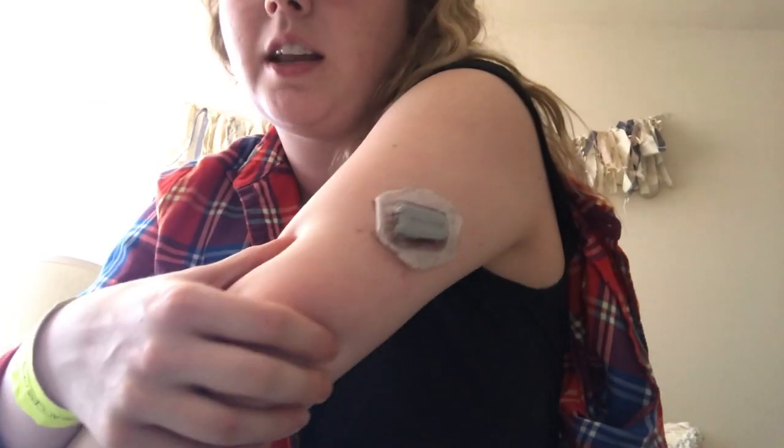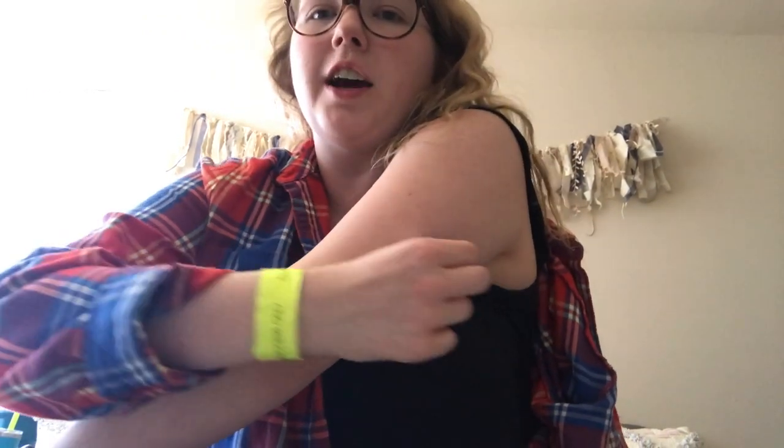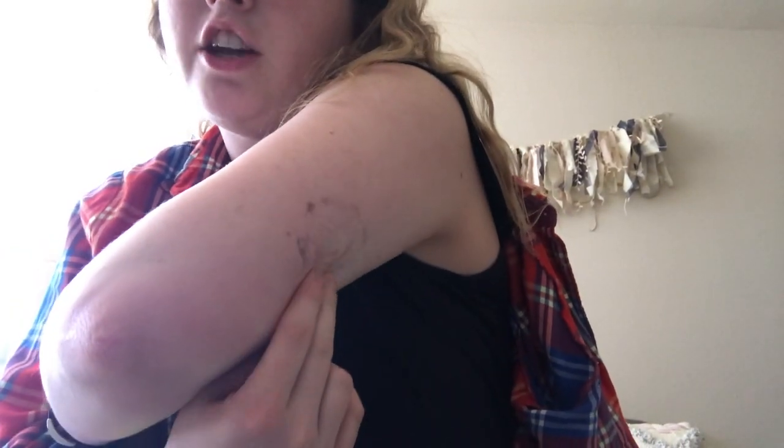These sensors are really expensive, so if it's still reading accurately I'm going to keep using it. Here's the one that's in me right now — you can see it's kind of fraying up. This one lasted 15 or 16 days, more than two weeks. I don't have to be as gentle taking it out — I can just pull it right off — and you can see it's going to leave some adhesive marks, which will take several days to come off.